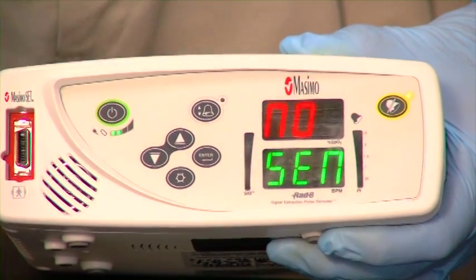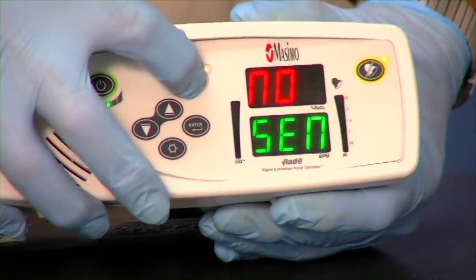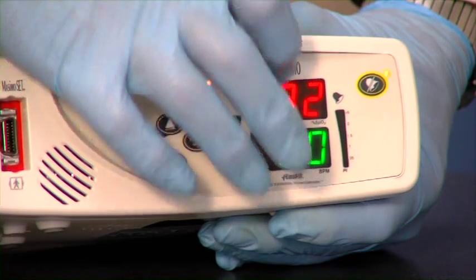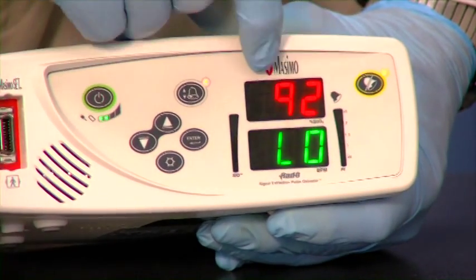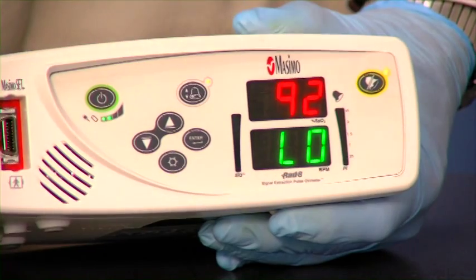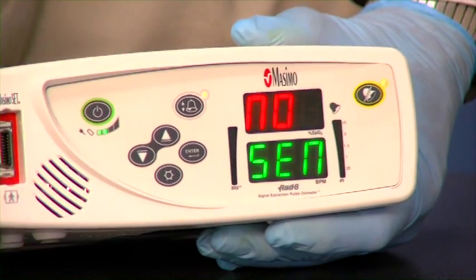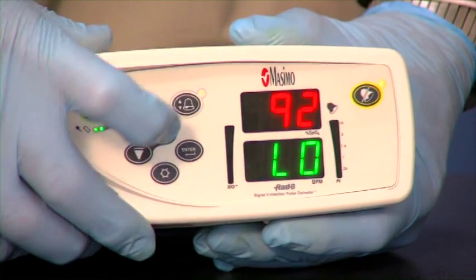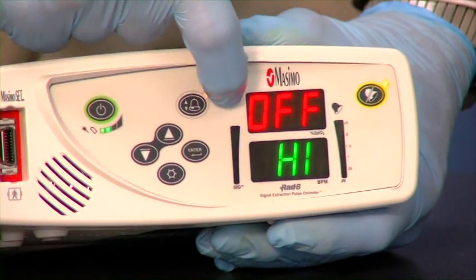We can go in and adjust the parameters that we receive from the physician for that patient. We press our selector button once and it will show us what our low oxygen level is. Right now it's 92, which is our default setting, unless we receive instructions from the doctor to set it at something else. When we press that button twice, this takes us to our high oxygen level.